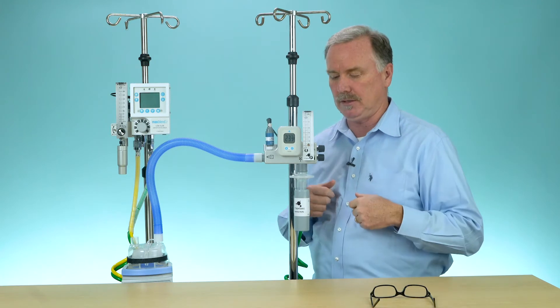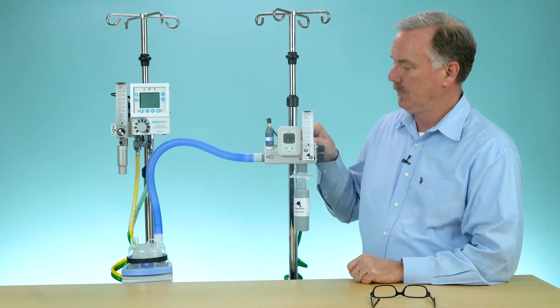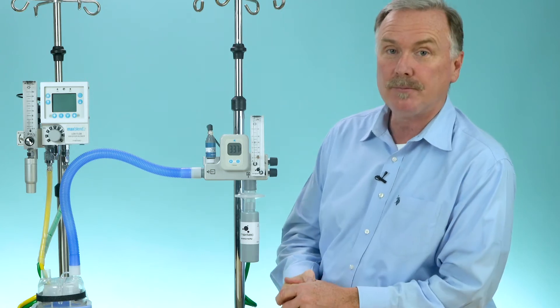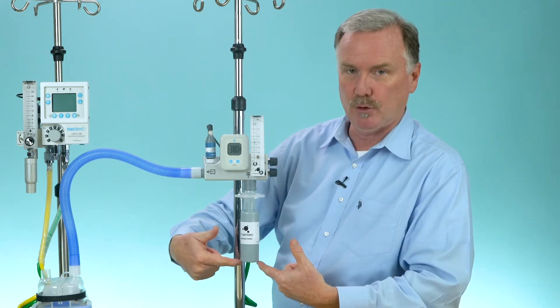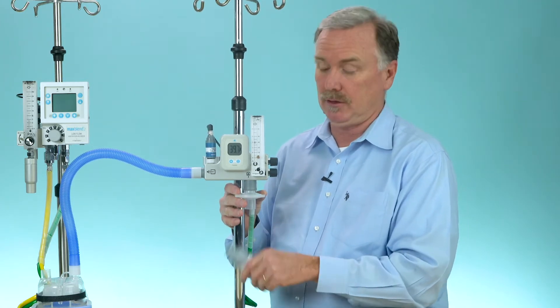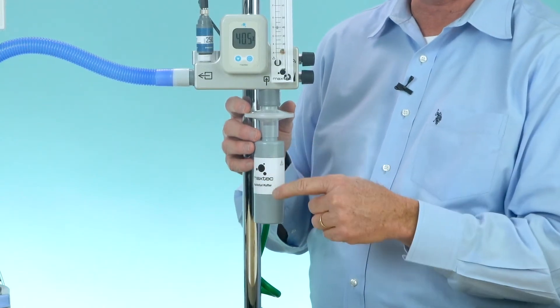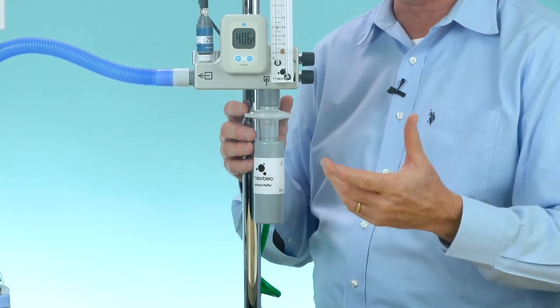I'm going to demonstrate that and also demonstrate the muffler. I have the Max Venturi set at approximately 40 liters per minute at approximately 40 percent, going through a heater bringing in room air right here. The difference with our muffler only at 40 liters is pretty noticeable. Notice we have a filter in between the muffler and the unit — you always want a filter in there because you are bringing in room air.